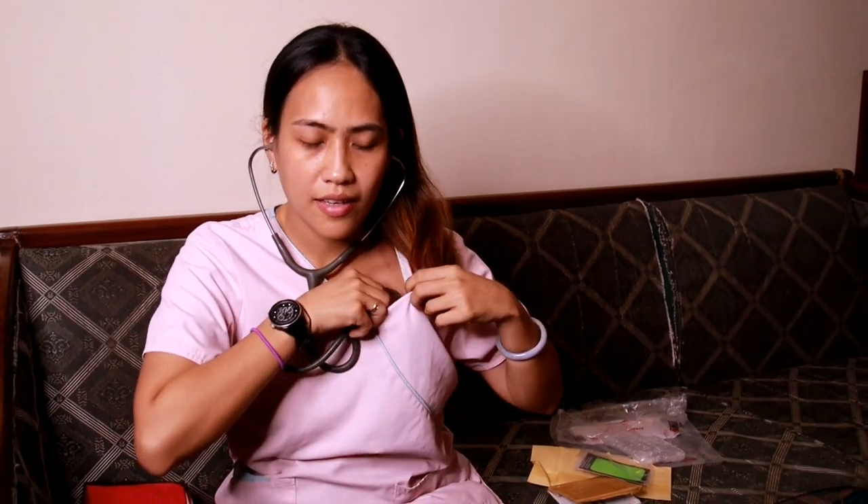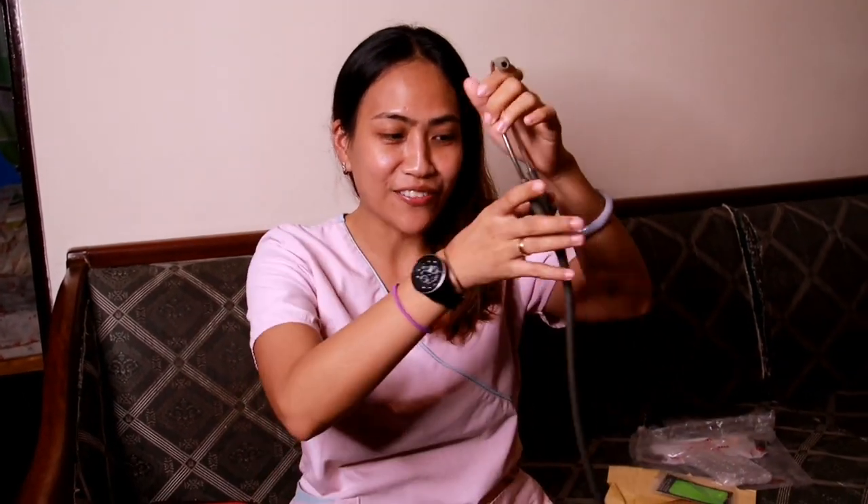I will try it and let's see if it's working. I can hear my heartbeat — it is pounding very fast, out of excitement that I found a good deal on my Shopee purchase! So it's so nice, I'm very, very, very happy.